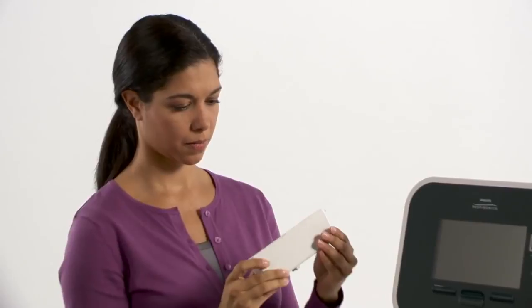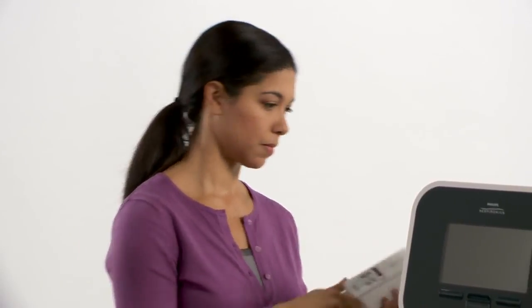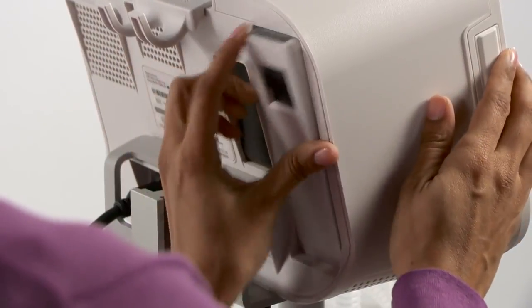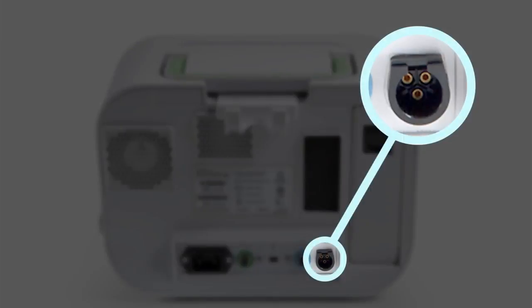If you prefer, you can attach the optional lithium ion battery into the detachable battery slot on the back of the device. A DC power adapter can also be used to connect to an external power source, such as a car battery.